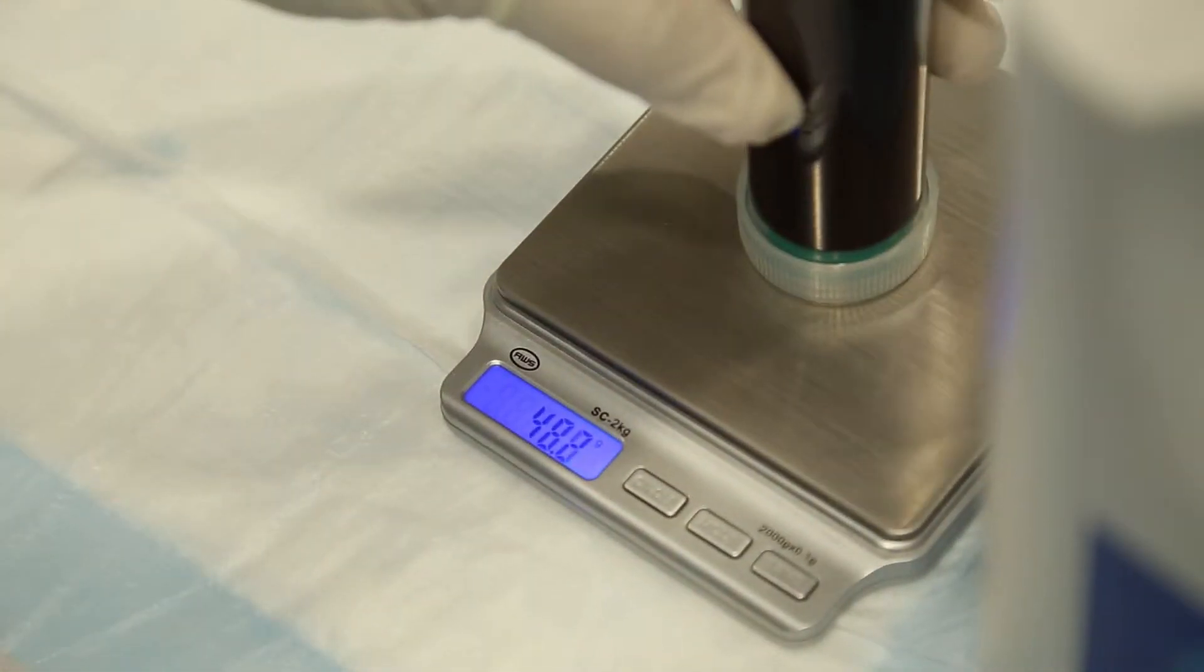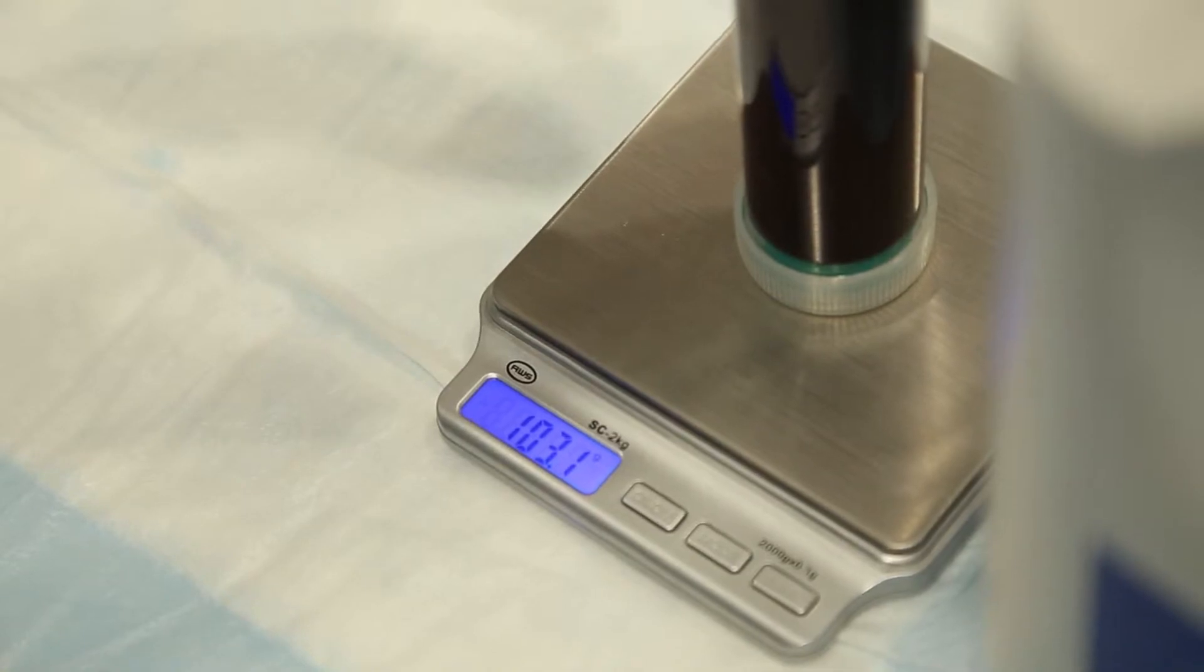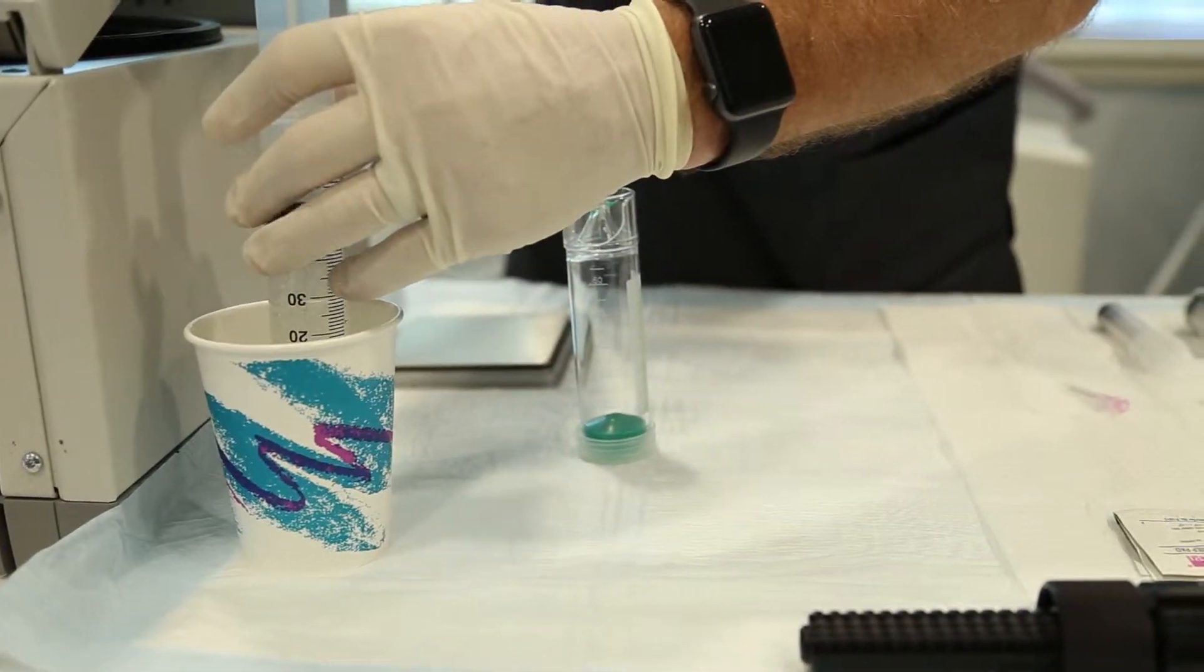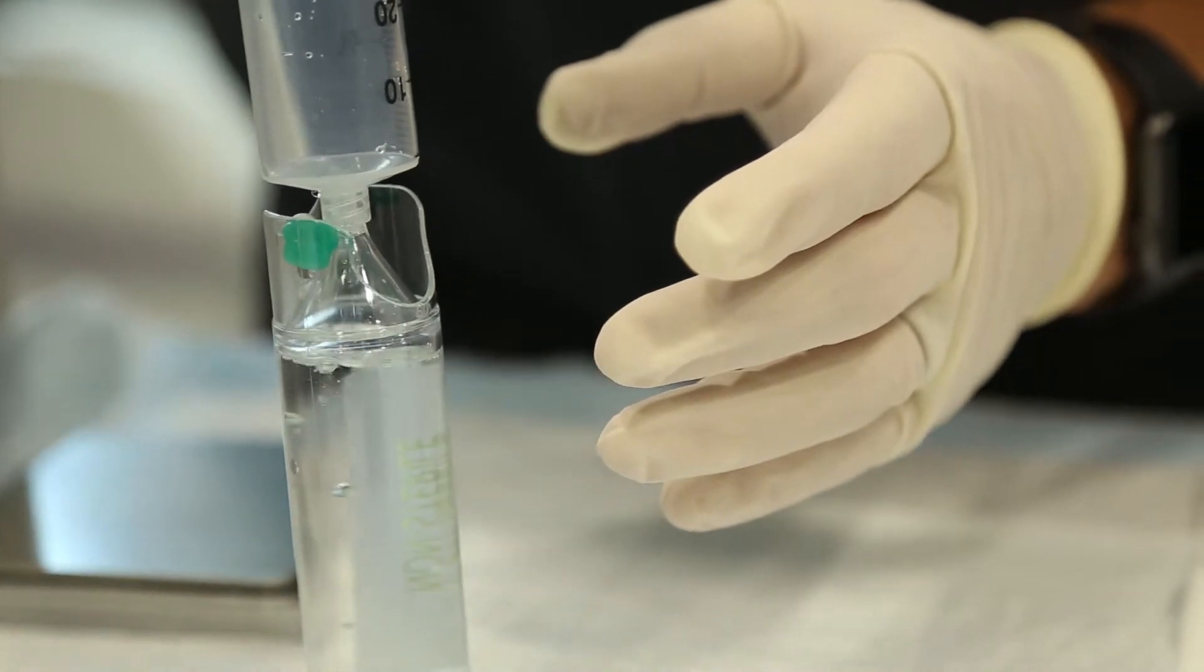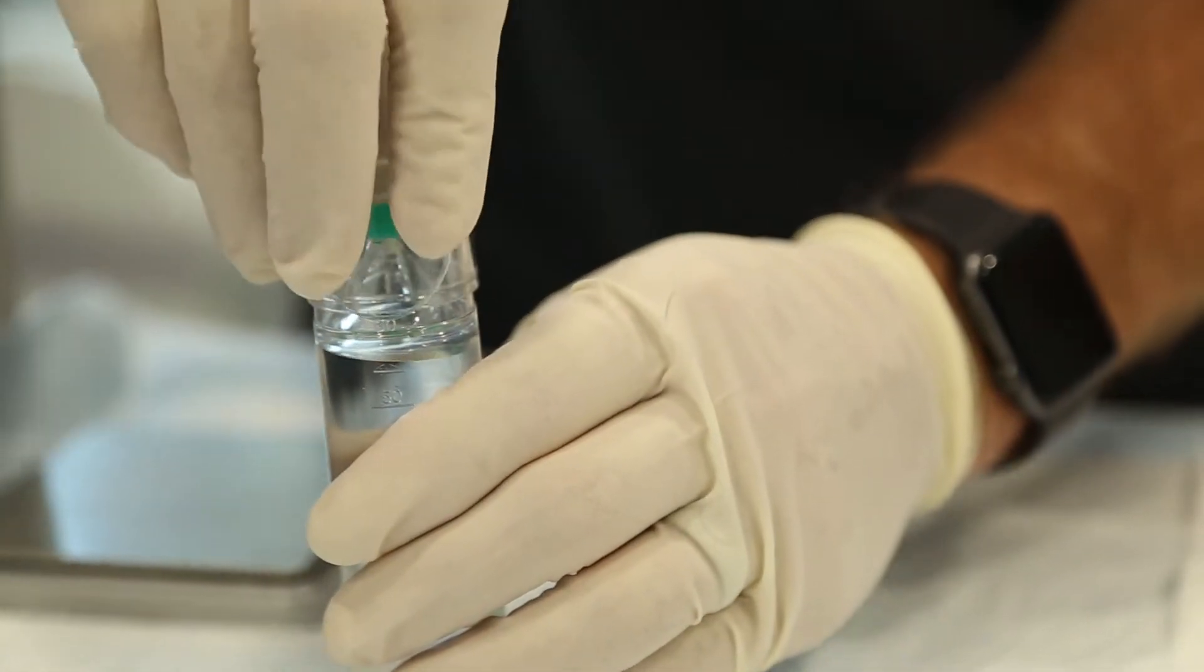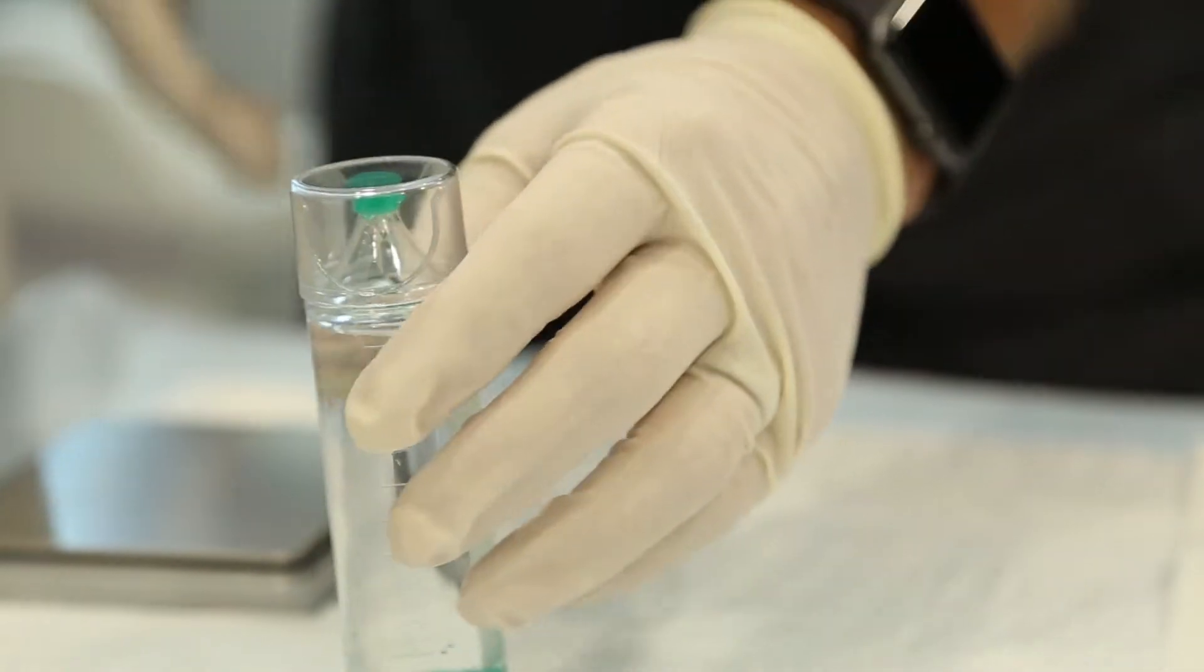Place the concentrating device on the scale to calculate its weight. Using a syringe, fill the counterbalance with water, matching its weight within one gram of the weight of the concentrating device. Be sure the plastic cap is secured on your counterbalance before placing onto the scale.